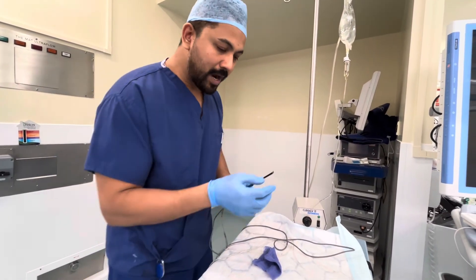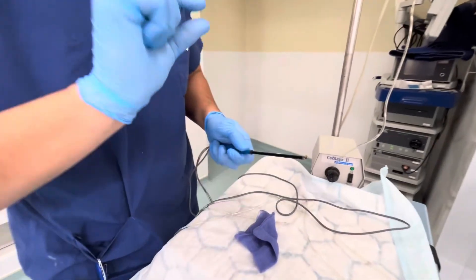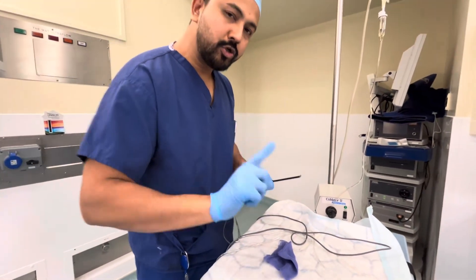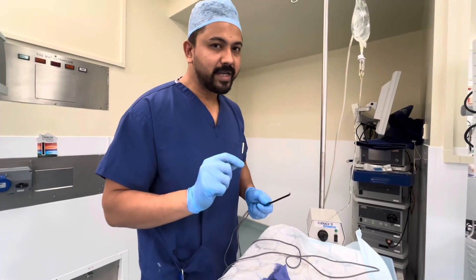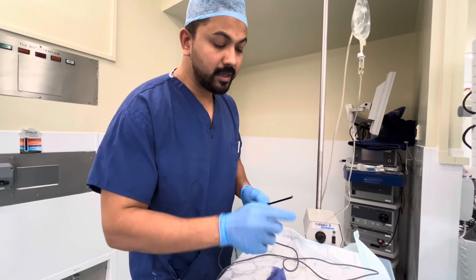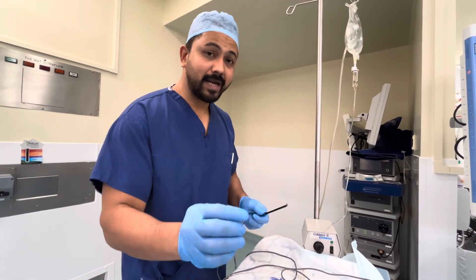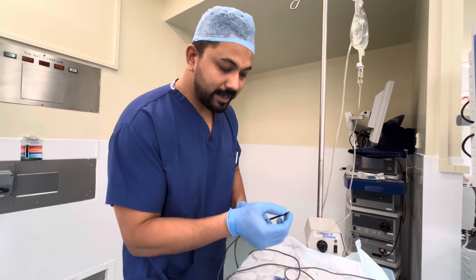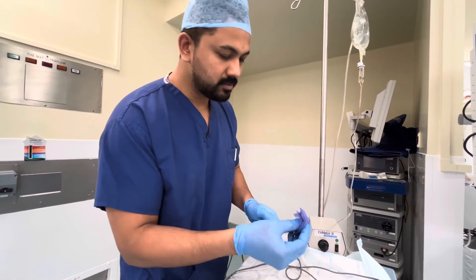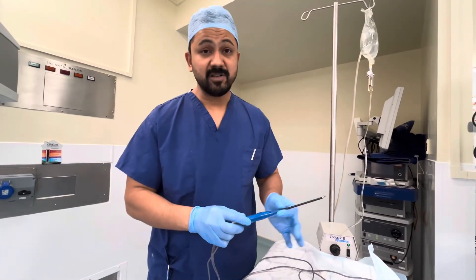One thing I'd like to add: there's a current which comes on this and the surface of plasma is formed. This should not generate smoke. If you're operating and it generates smoke, that means there's no water current going in — it is blocked, the suction is blocked, and that's why the tissue is burning. At that time, stop it, take it out, clean it. You can clean with a swab or scratch card, and then it will start working.